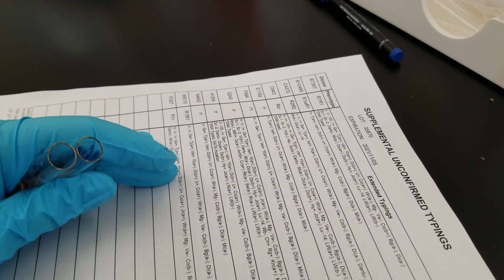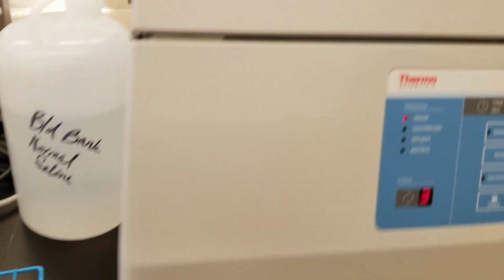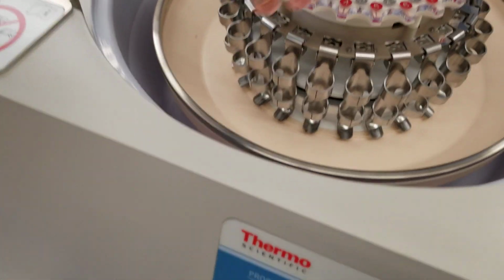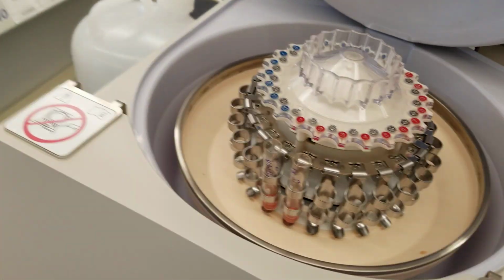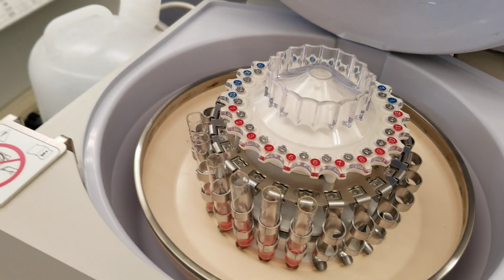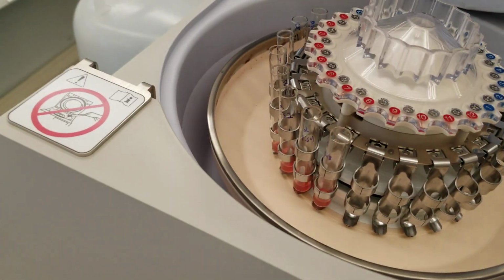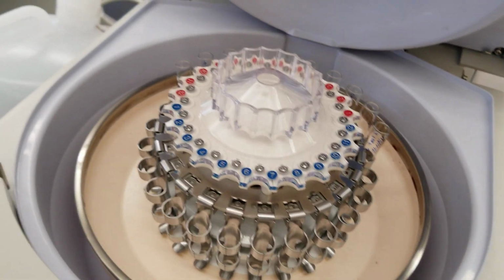Okay, so now we're going to do the cell washing and then finish off with the AHG phase. So here we go. Cell washer, here we come. All right, so we're going to open it. Look at that gorgeous thing. Right, as we put them in, we're going to make sure they spin well, okay? Gonna make sure that we agitate the tubes before we let it go. We want to make sure they're suspended so that the procedure will get all the cells washed appropriately. All right, so that's that one.